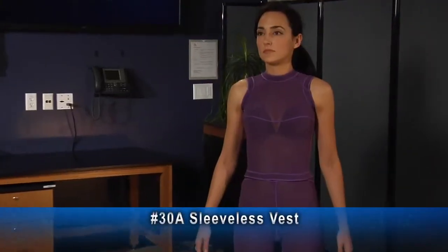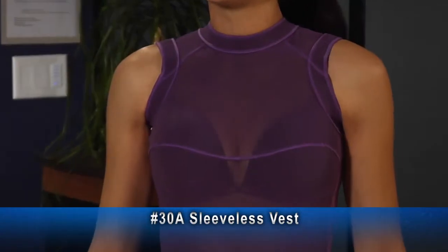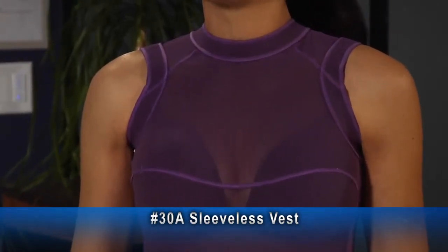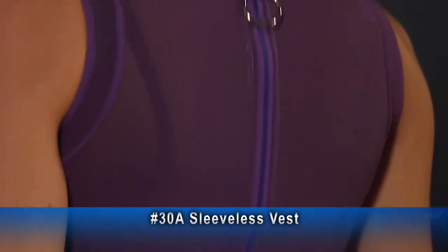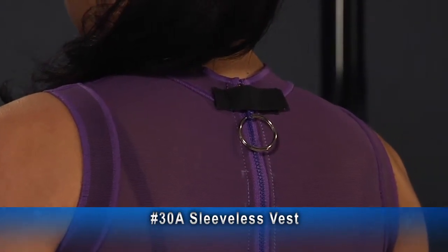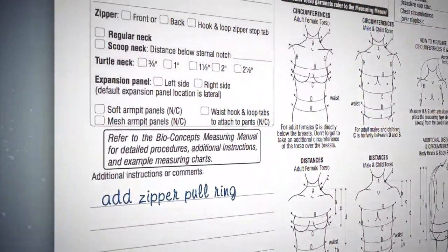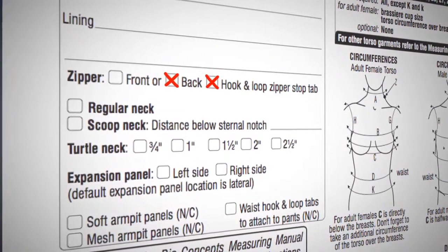This example of a number 30A sleeveless vest has breast cups. The zipper has a Velcro zipper stop at the top and a pull ring on the zipper. If these or any other options are desired, they must be specified on the measurement chart.